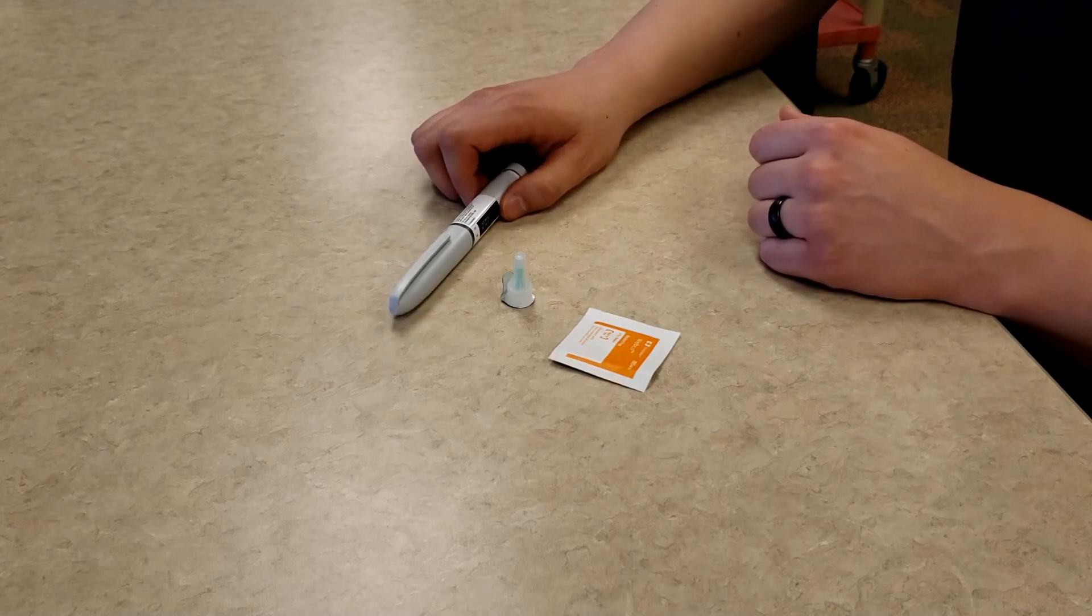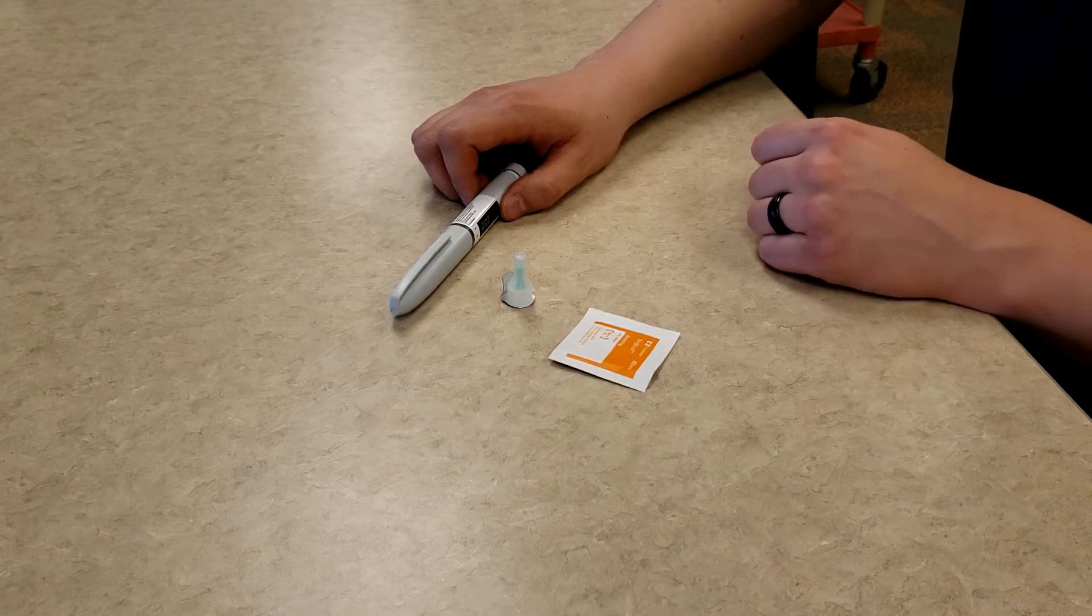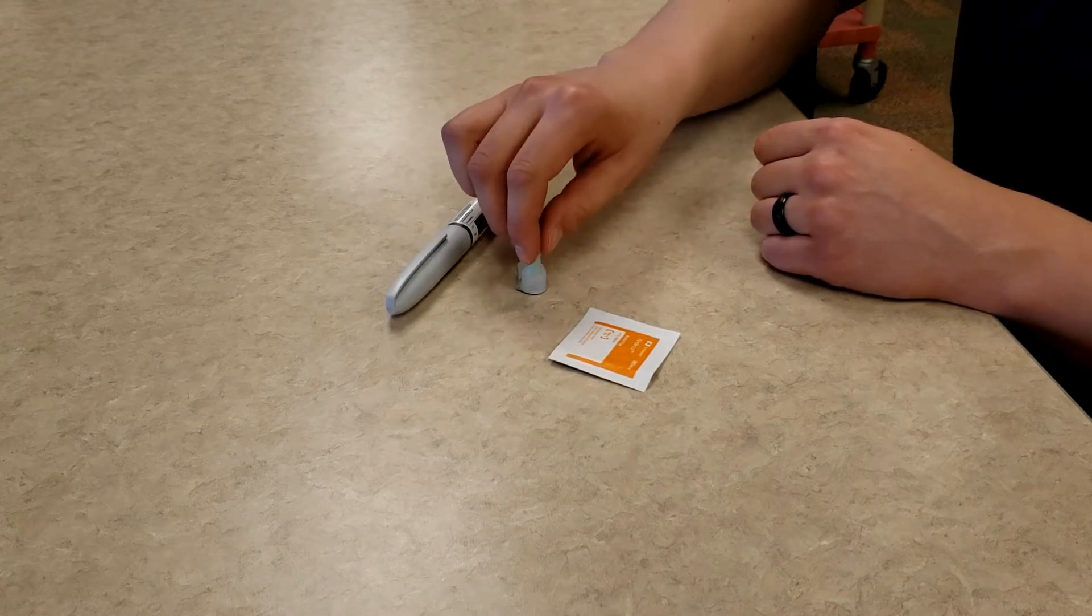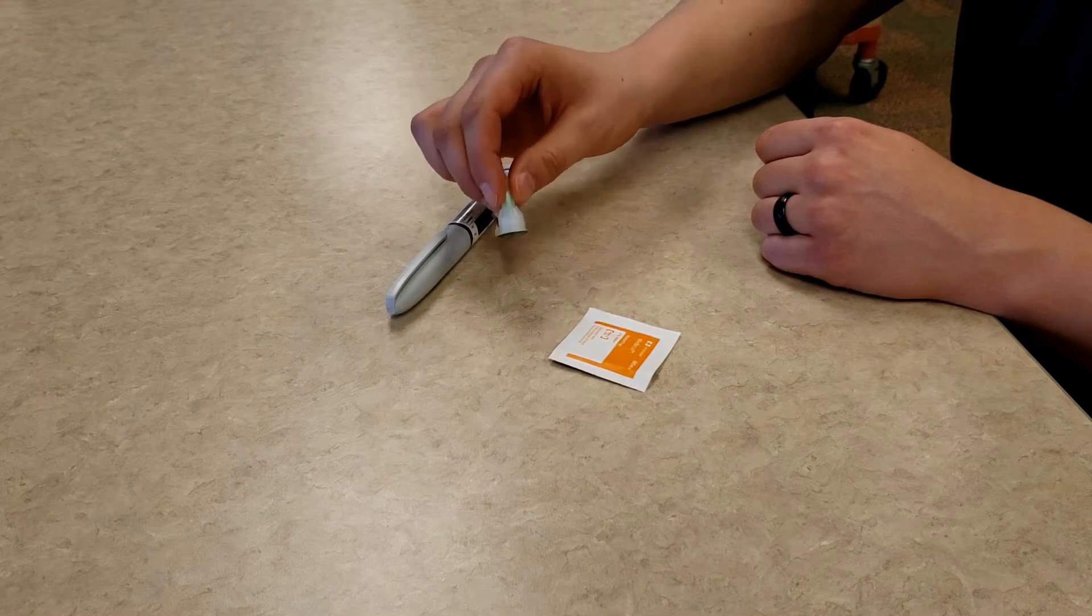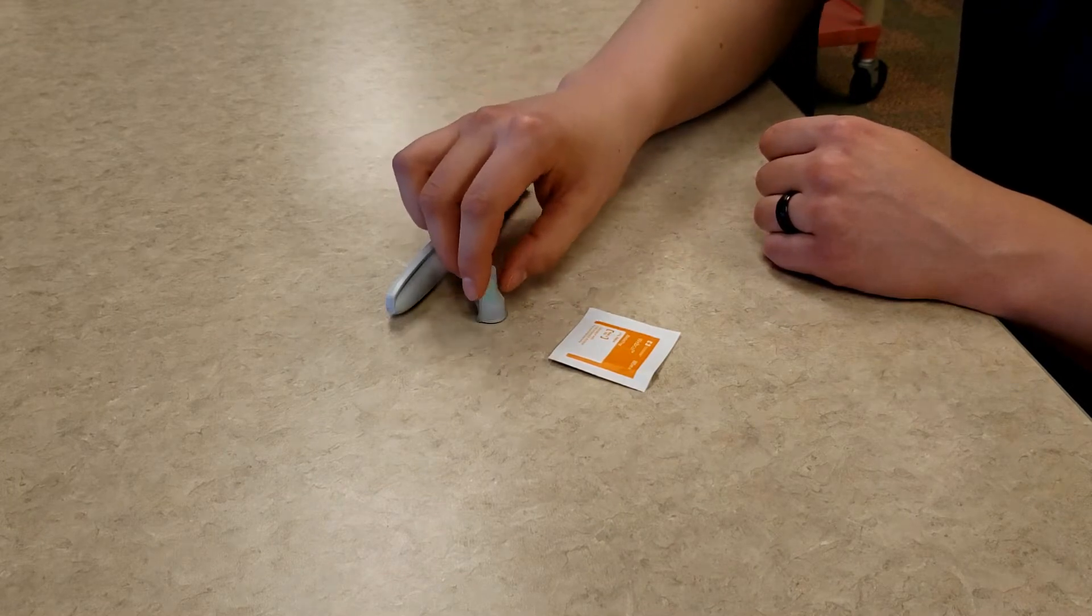Your prescription should include the type of insulin, the doses, and the specific time of day in which you are to be taking each prescribed dose. The second item you need is an unused sterile pen needle. The last item you need is an alcohol wipe.